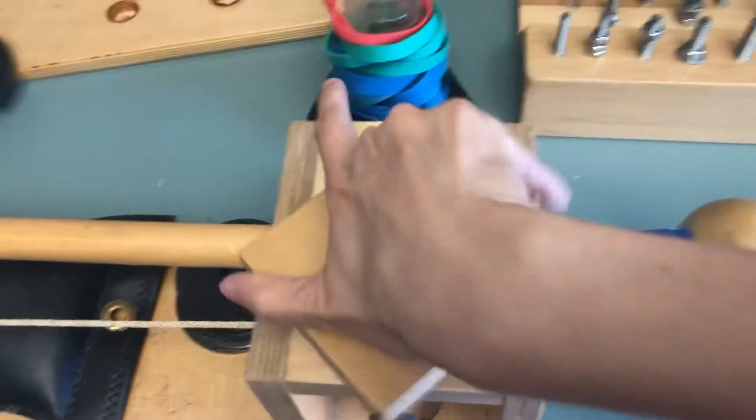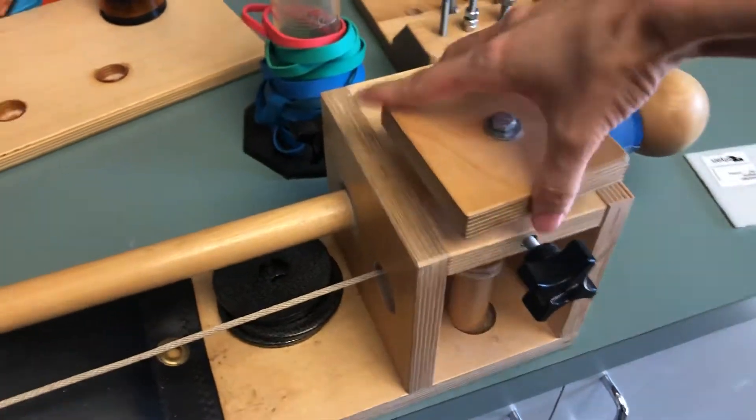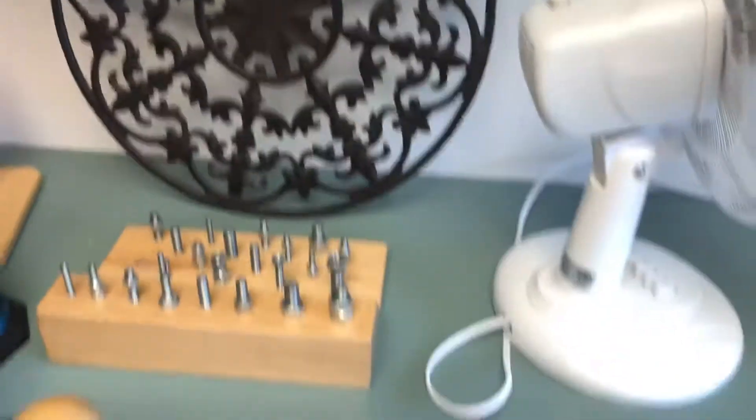And then this — if you ever have trouble opening jars, it's for strengthening that grip strength. That was not a good example. Don't do that.